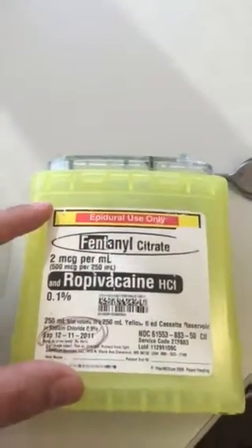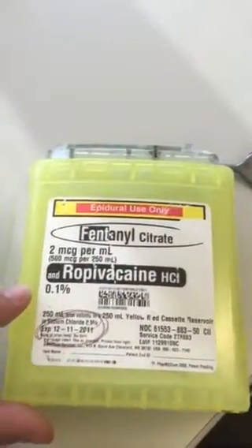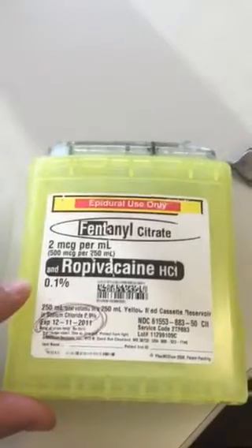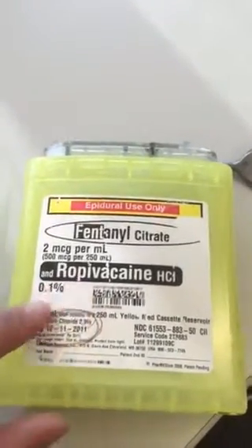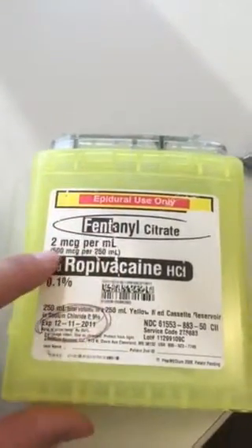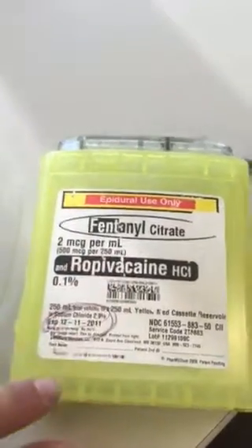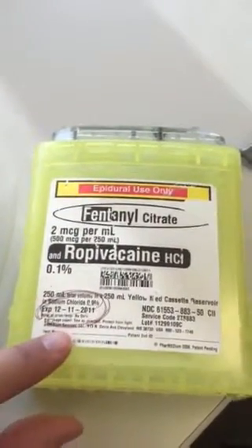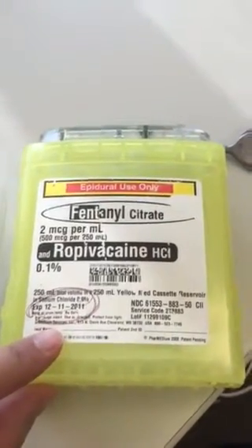But two nurses should verify what is on the label to ensure that it is the correct concentration and medications as reflected in the order set. So this would be ropivacaine 0.1%, fentanyl 2 mics per ml. I believe our current labels now will also have the patient's name and MRN number listed on them.